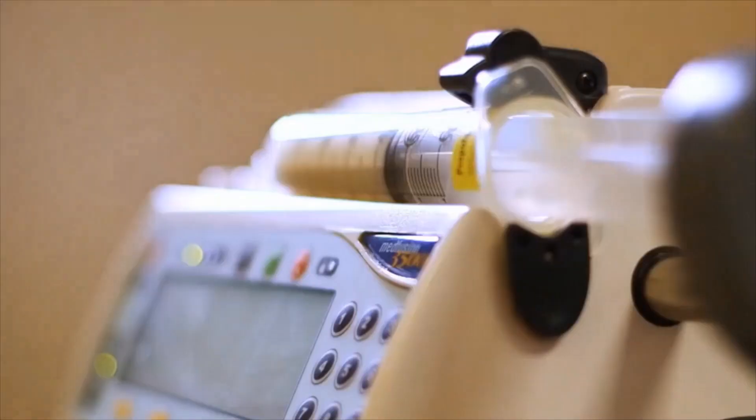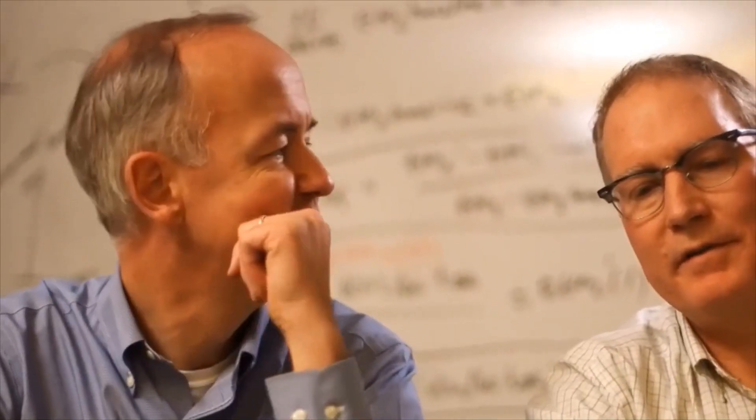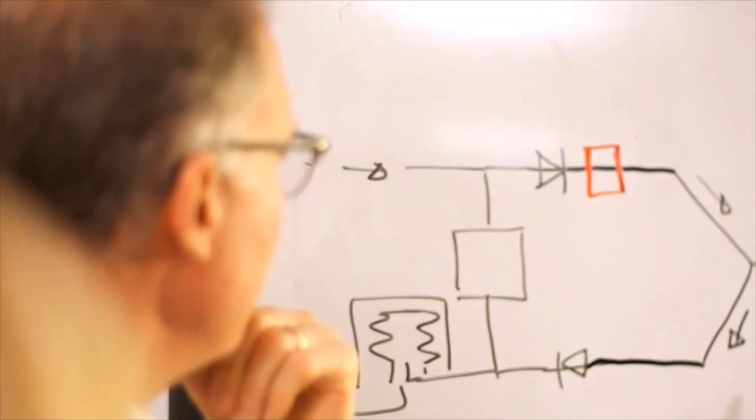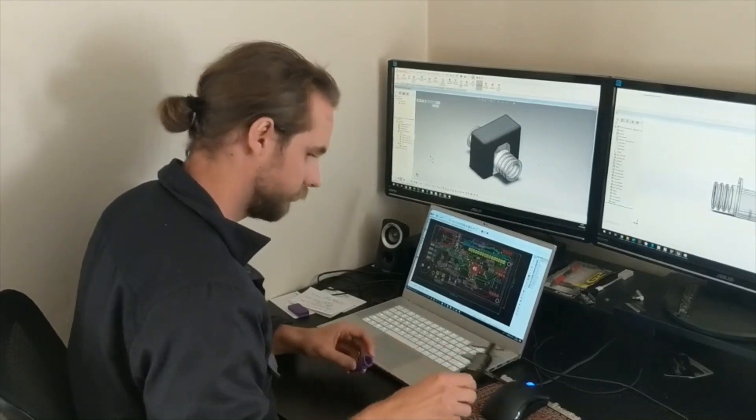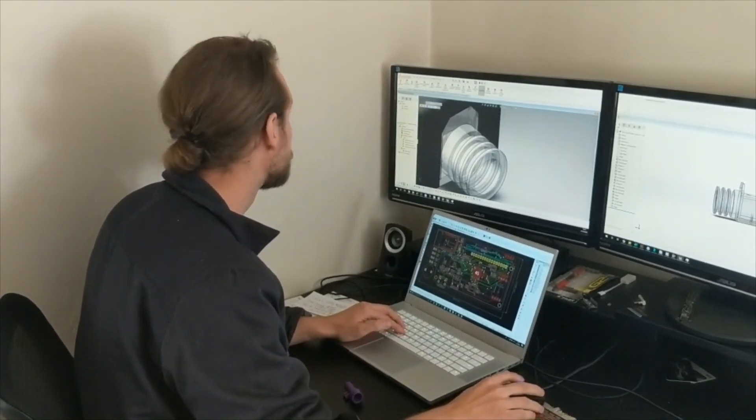In our lab, we have decades of working on respiratory devices and monitors on anesthesia technology. We decided to combine our resources together to really build a team. We call this the Utah Stanford ventilator.